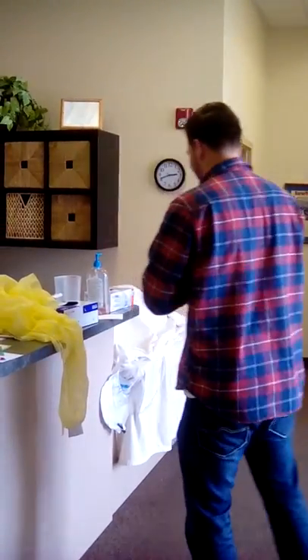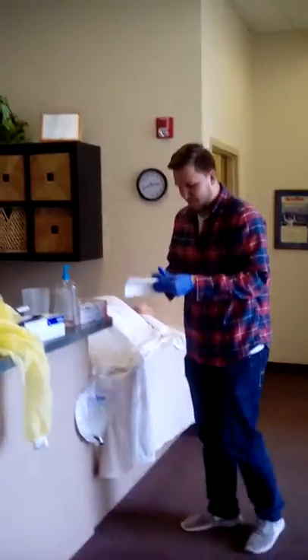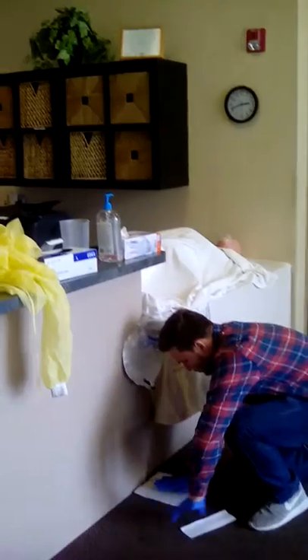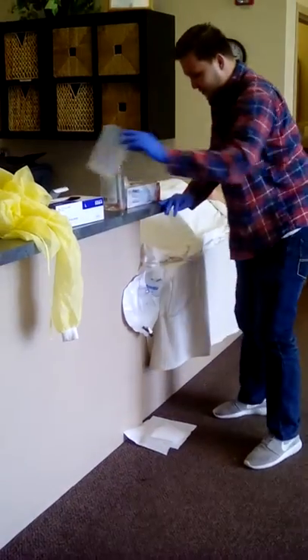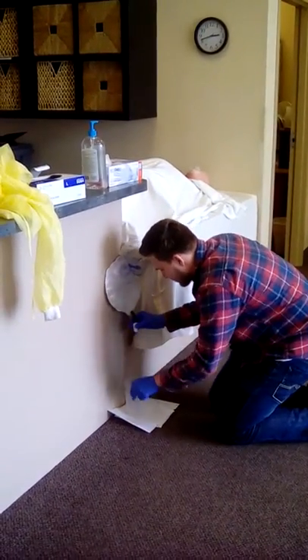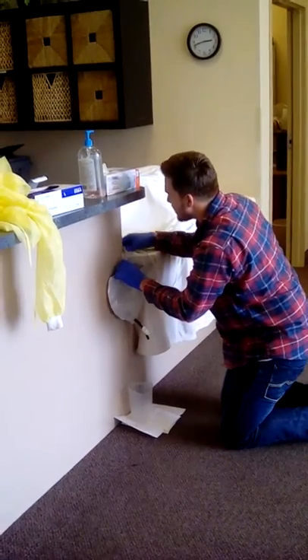Alright, now we are going to place the paper towel down, little Timmy. Here we go — we'll just place both of them. I'm going to put the graduated cylinder down. Take this and we'll pull this down a bit.